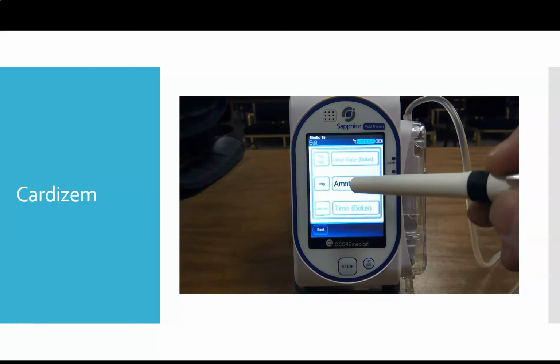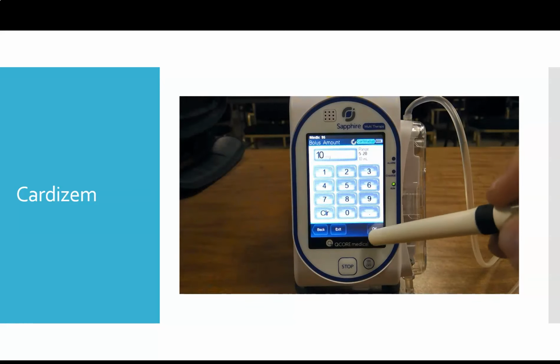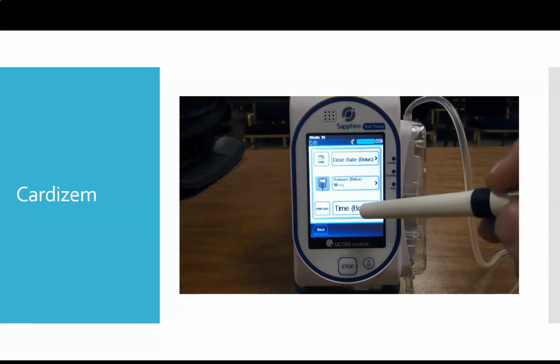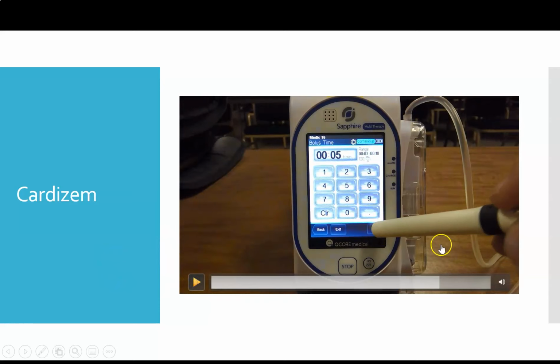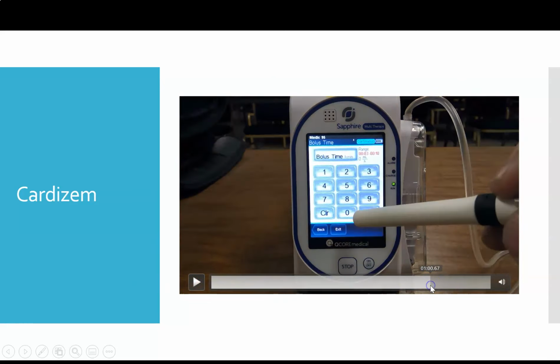And now once our pump is set up, we're going to do the bolus. We're going to press this bolus button and enter in how much Cardizem we want to give. We say we're going to do 10 milligrams, and then we want to figure out how much time we want to give that over. Let's just back up here real quick. It can be very tempting to want to click... Oh, sorry, back one more.